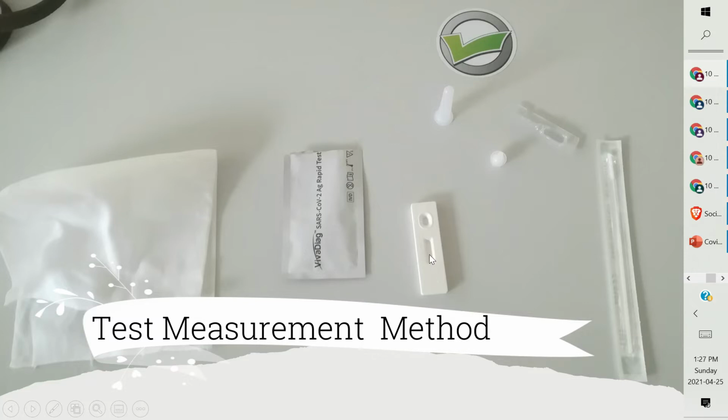Be ensured that your test kit is properly sealed. It should not be punctured, it should not be ripped off. Okay, it should be properly sealed, and it cannot be reused. It's only a one-time test evaluation kit, and this is, you can say, a sterilized cloth piece.